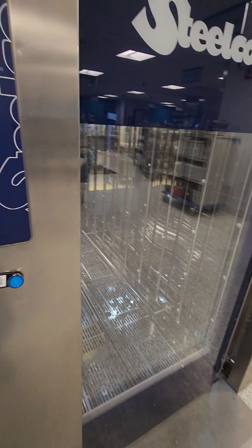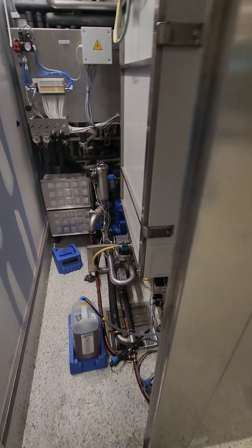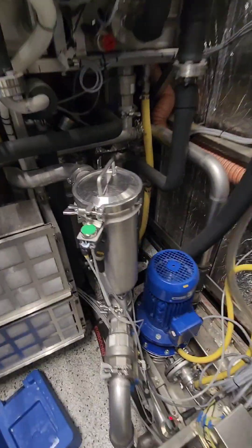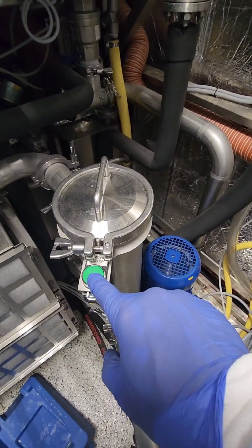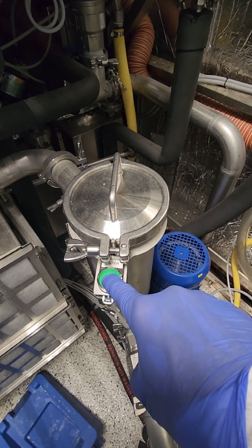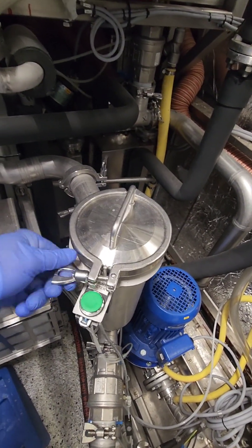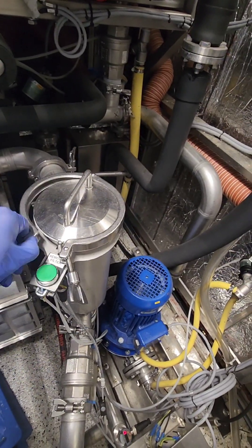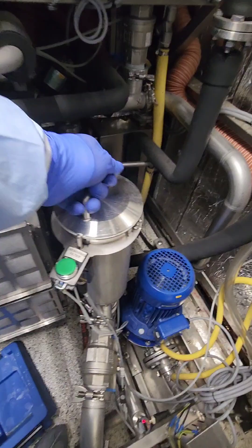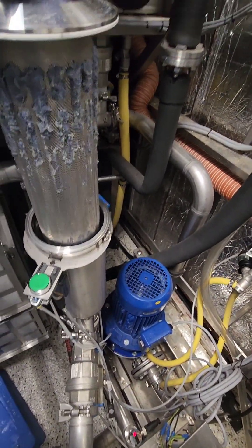We'll close the door, and then there's one more checkpoint on the cart washer — the filter in the maintenance area. We hit the green button to access it, then remove the lock collar and wiggle the canister to pop the filter up.